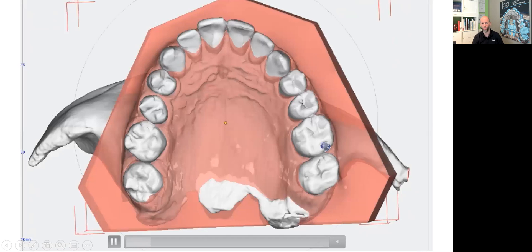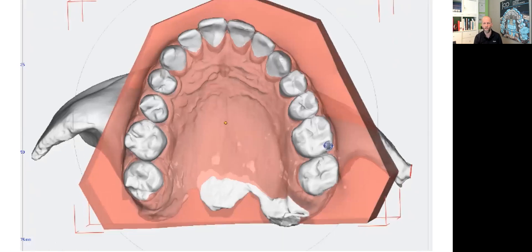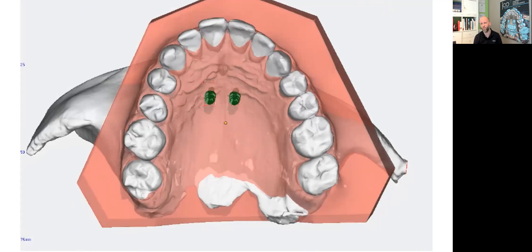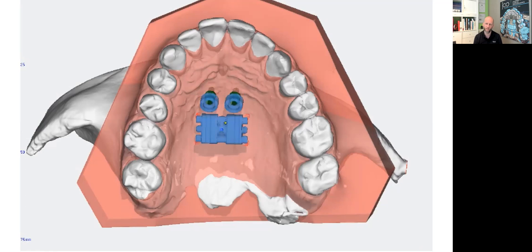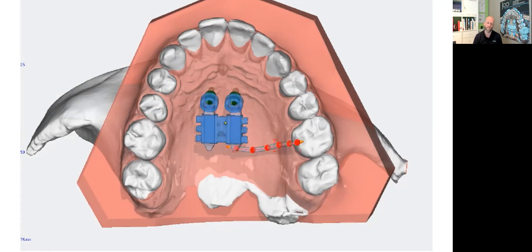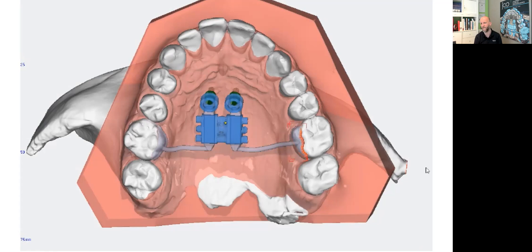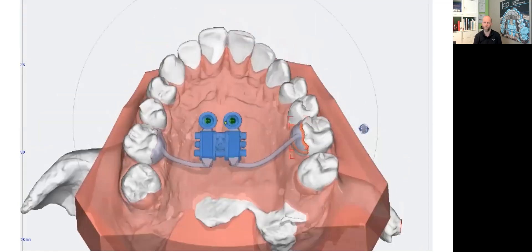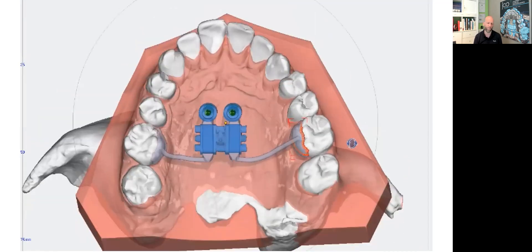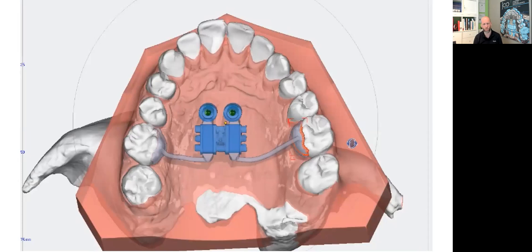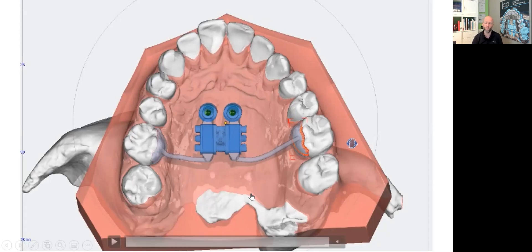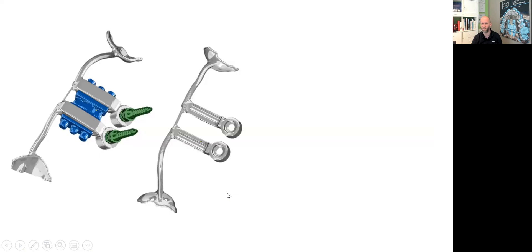We have the bone. On top of the bone, I have my virtual, my digital gingiva. The mini screws are inserted. On top of the mini screws, we get out of the 3D object library abutments, a Hyrax screw, two connectors, which I personally like quite rigid. We get connectors to the molar pads and I add two molar pads. You can change this design by selecting different 3D objects or delete some or erase some 3D object. The limit is only your personal imagination and creativity.